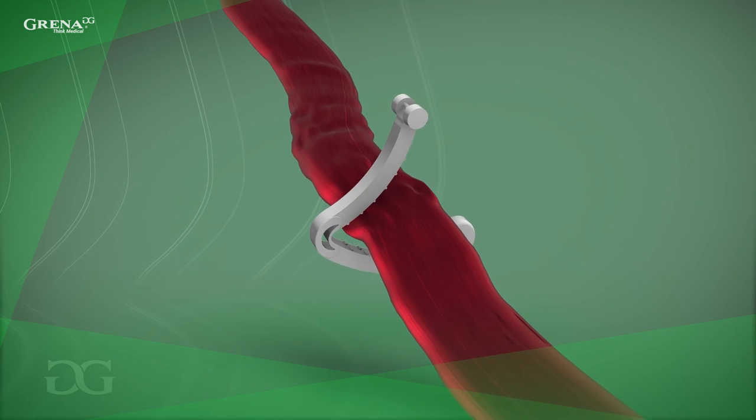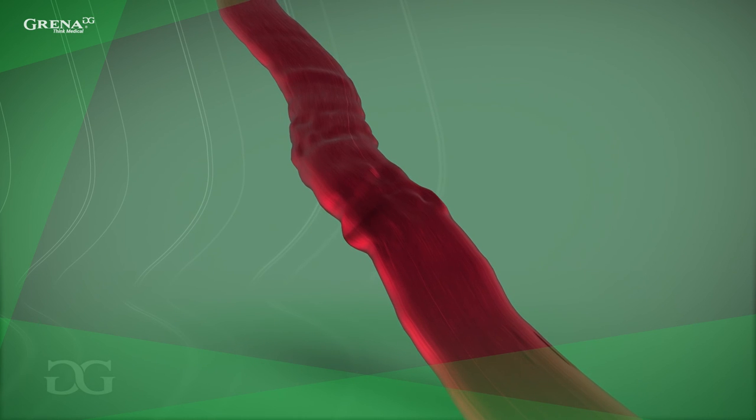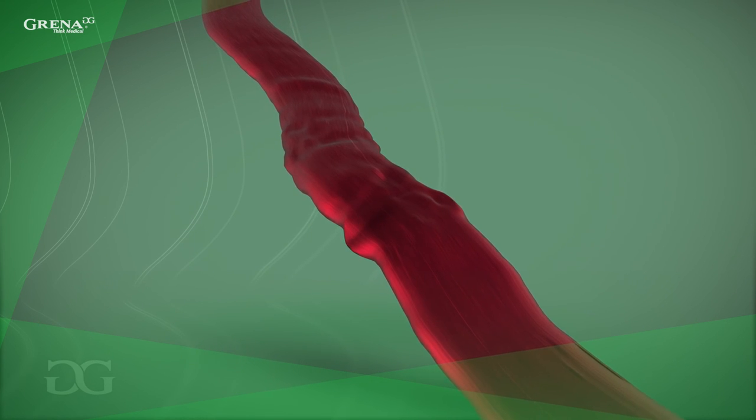The analysis of inner vessel wall has not revealed any differences in the vessel structure after closing ClickaV Plus ligation.